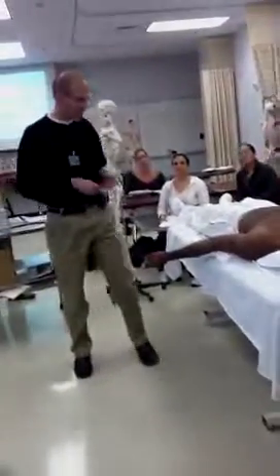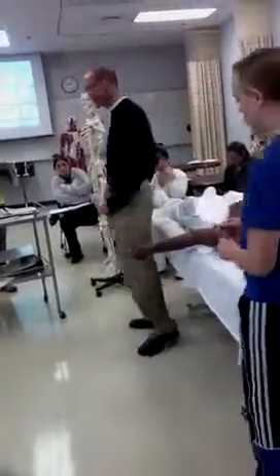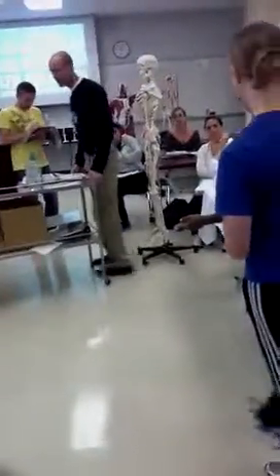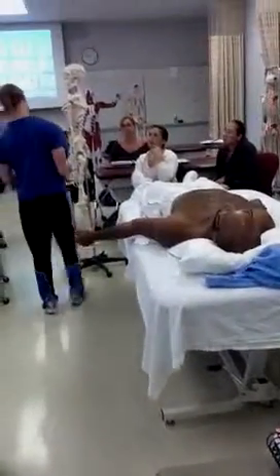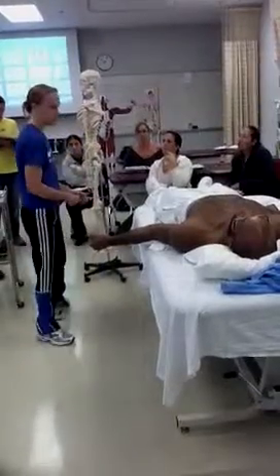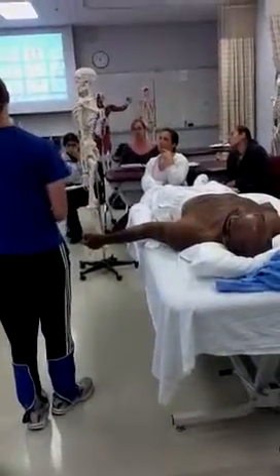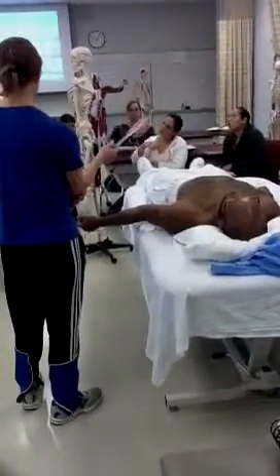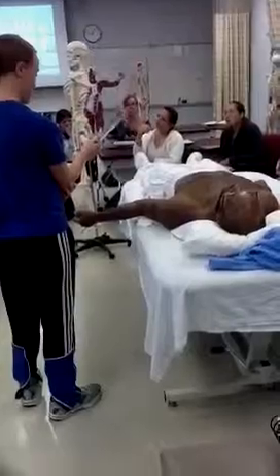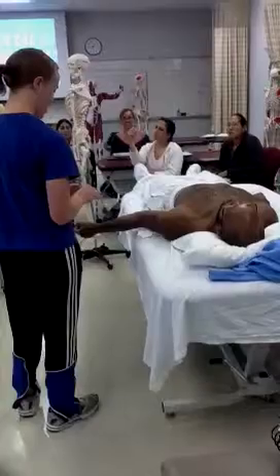Patty, where is the axis going to be for the goniometer? It's going to be on the lateral epicondyle. Can you palpate that on the skeleton, please? Remember, which epicondyle is easier to palpate? The medial. So if you have trouble, you can find the medial first and go right across to the lateral epicondyle — that's what we're going to line up the axis of the goniometer with.